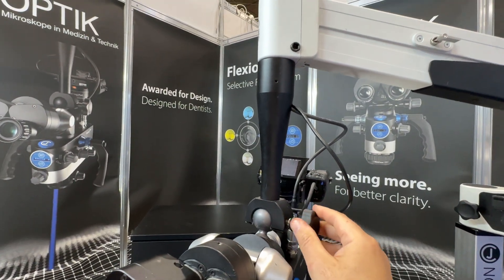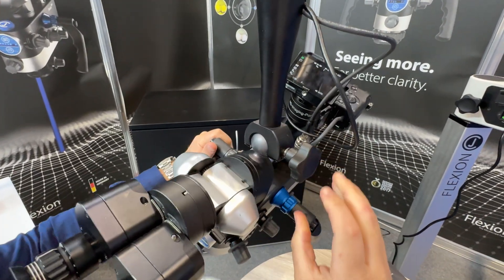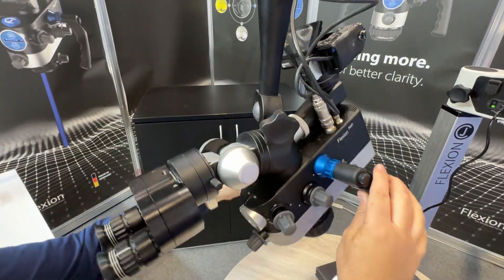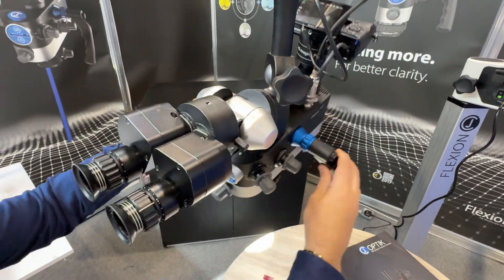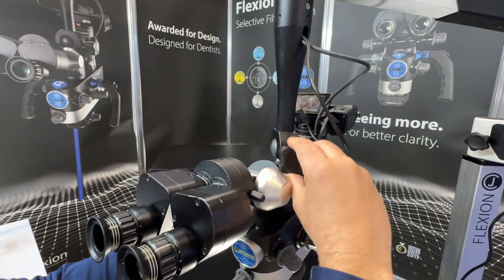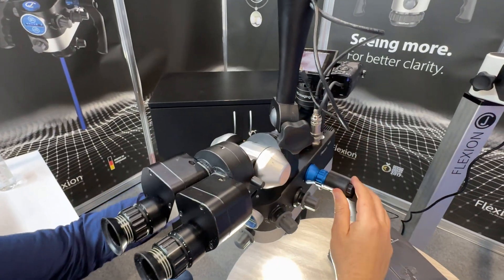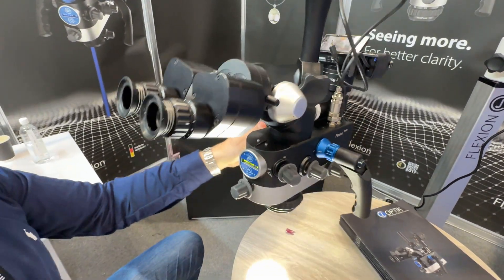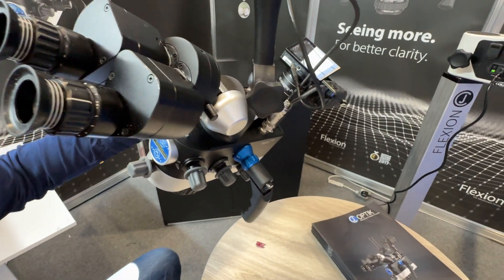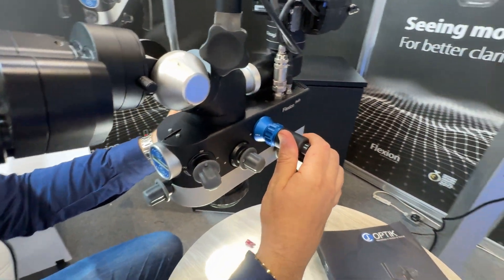So from the top we've got something called the monoglobe. If we just loosen that tensioner you can see we've got 360-degree access, and if we tighten the tensioner just enough there's still a bit of movement - wherever you want to go it will stay.